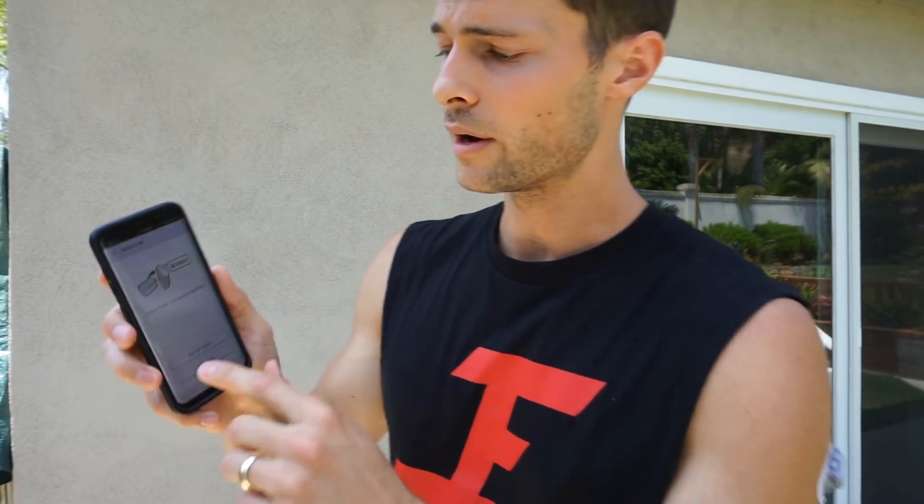No finger sticks — yes please. Going through things that cannot be silenced: urgent low, transmitter failure, sensor failure, that kind of stuff. Now we go to sensor code. It is letting me know the sensor code is on the sensor. I am going to hit 'enter code.' As you can see we have got the sensor code right there — it is 5931. Don't steal my identity.